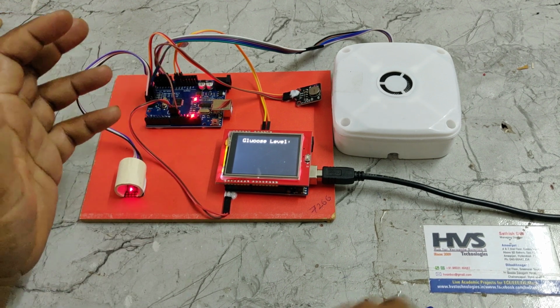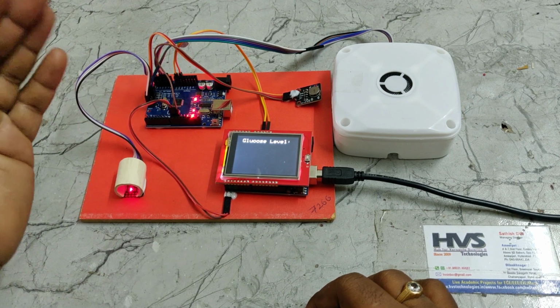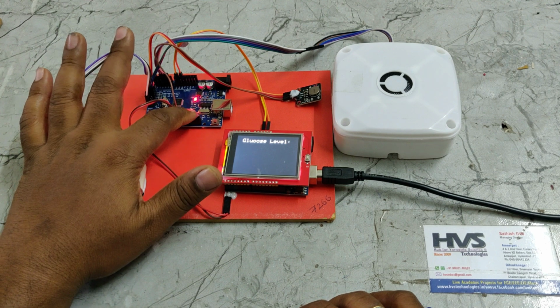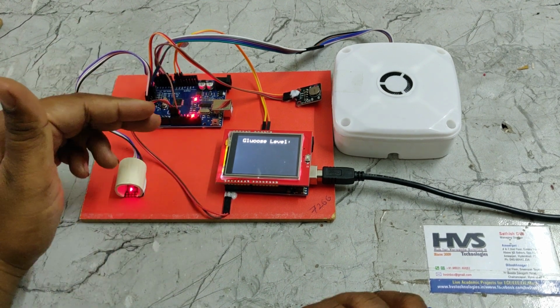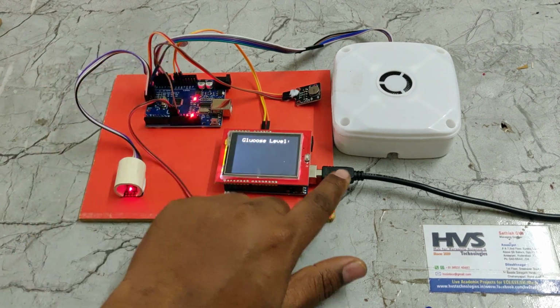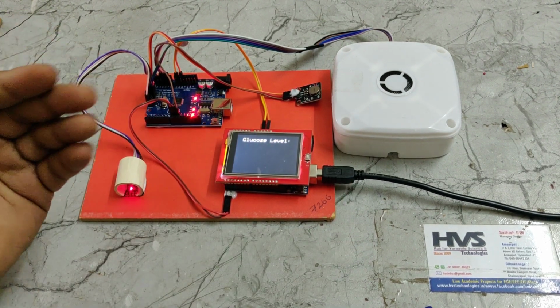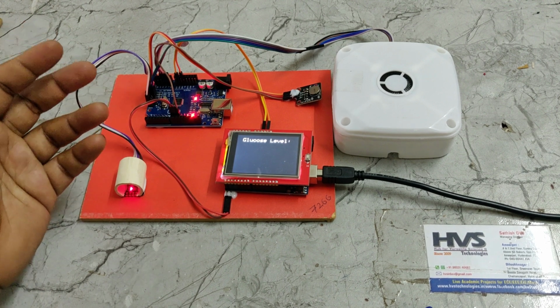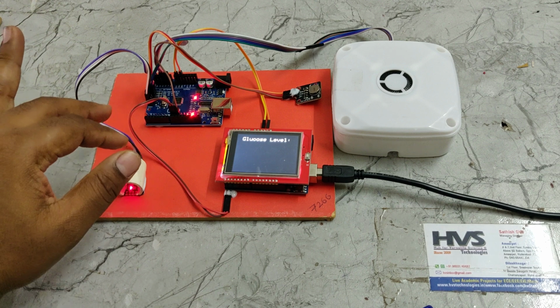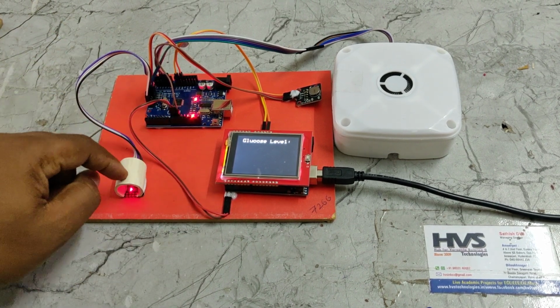We have captured real-time glucose level values of some 25 people, along with their three sensor values. The blinking is the board sending the data over serial communication for analysis purposes. We can get it by connecting the cable over here. We can get the red, IR and green LED values from there. From there, we analyze the glucose levels by checking the intensity of the light received from that sensor.